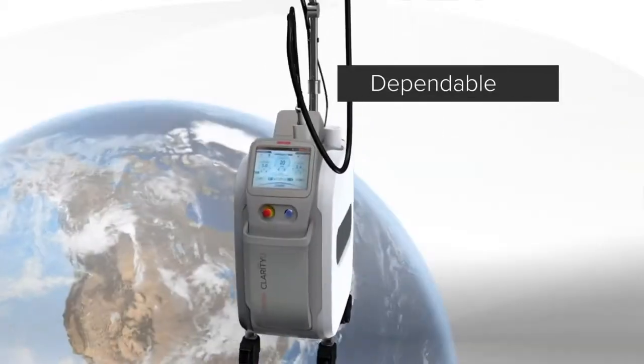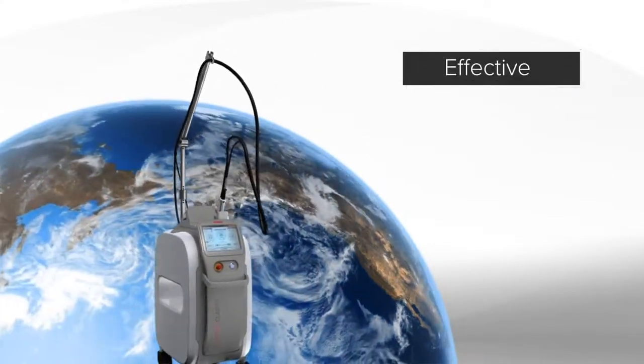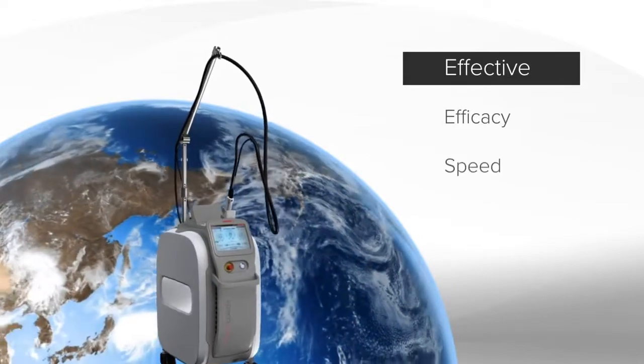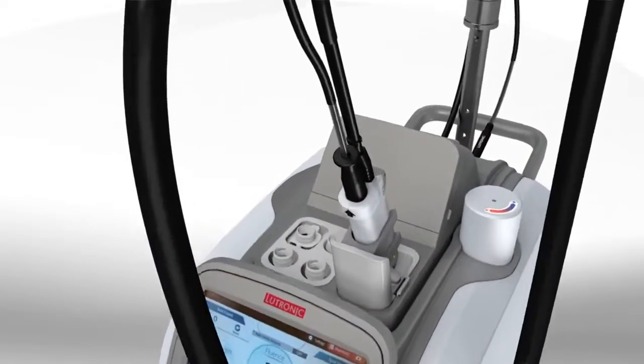It's dependable, built upon the foundation of Clarity's worldwide performance, and it's effective delivering efficacy, more speed, and easy versatility. No other platform provides these new capabilities.